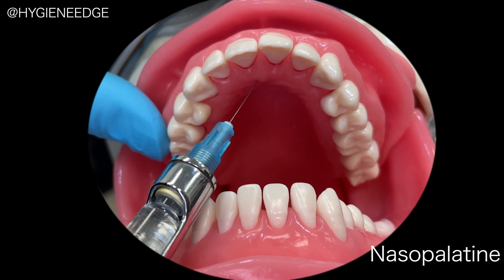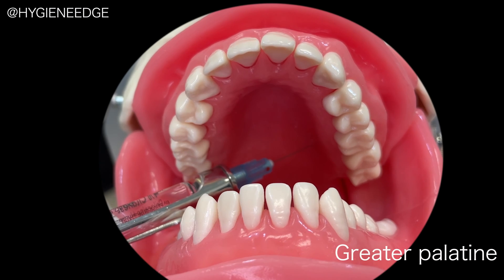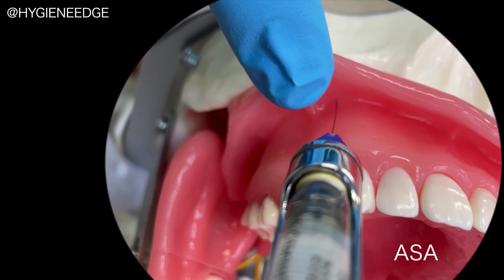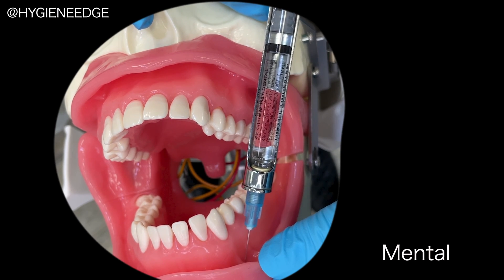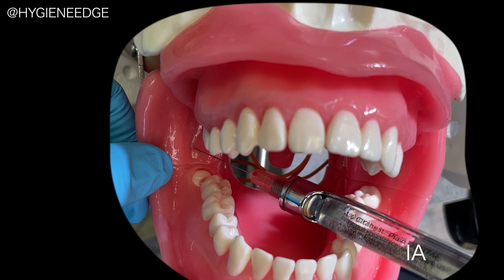This model also has sensors on the nasal palatine, right and left palatals, ASAs, mentals, and IAs.